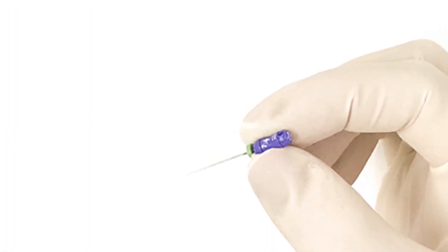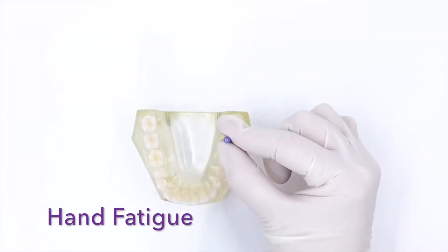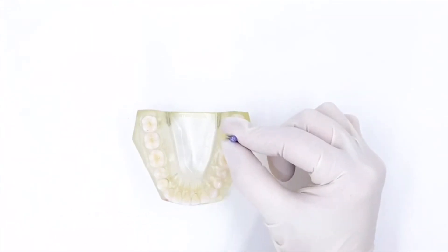Every root canal starts with a hand file, but hand fatigue, glove bunching, access, and visibility can all be time-consuming, frustrating, and expensive.